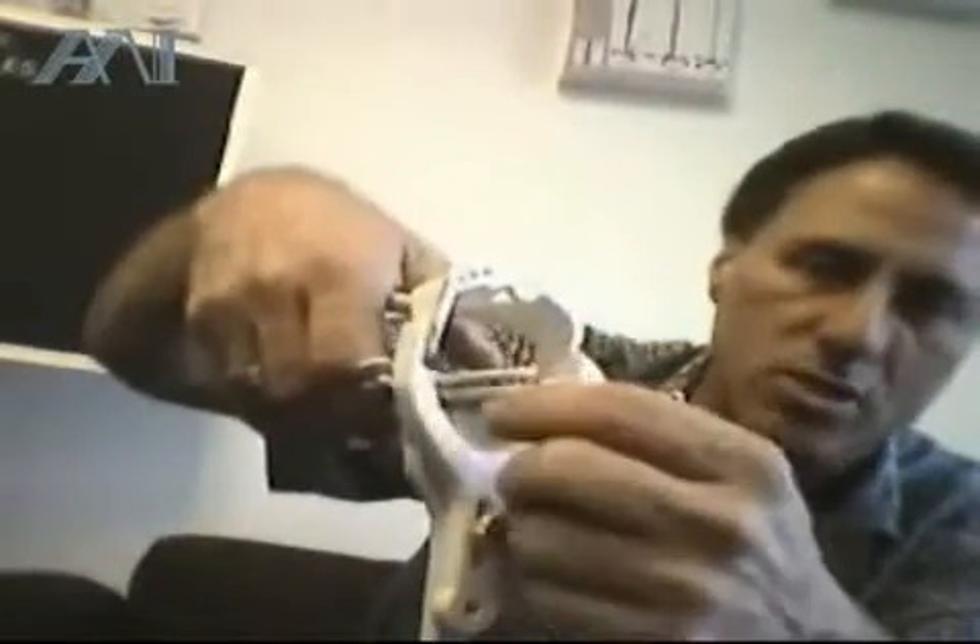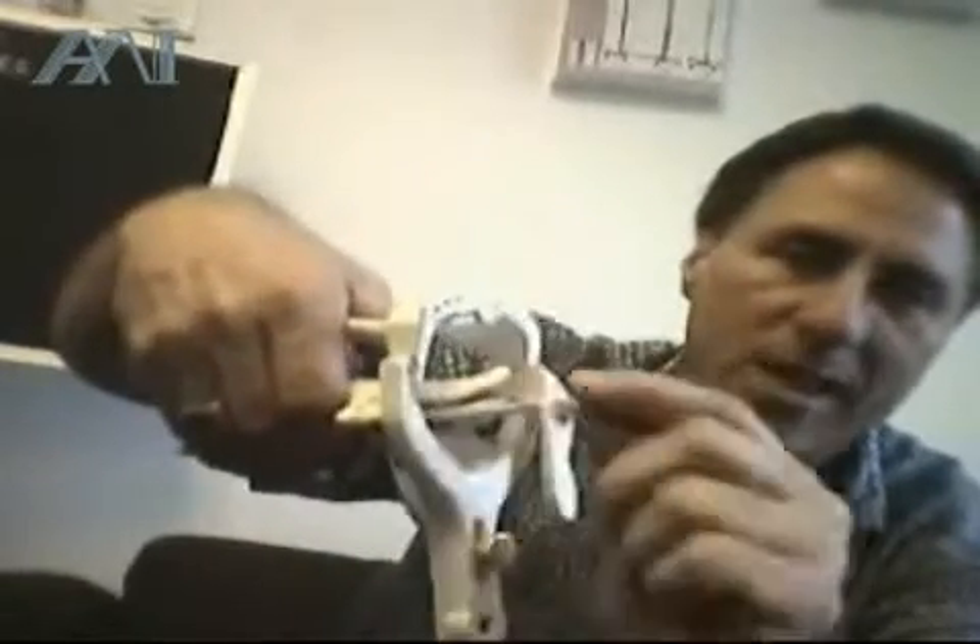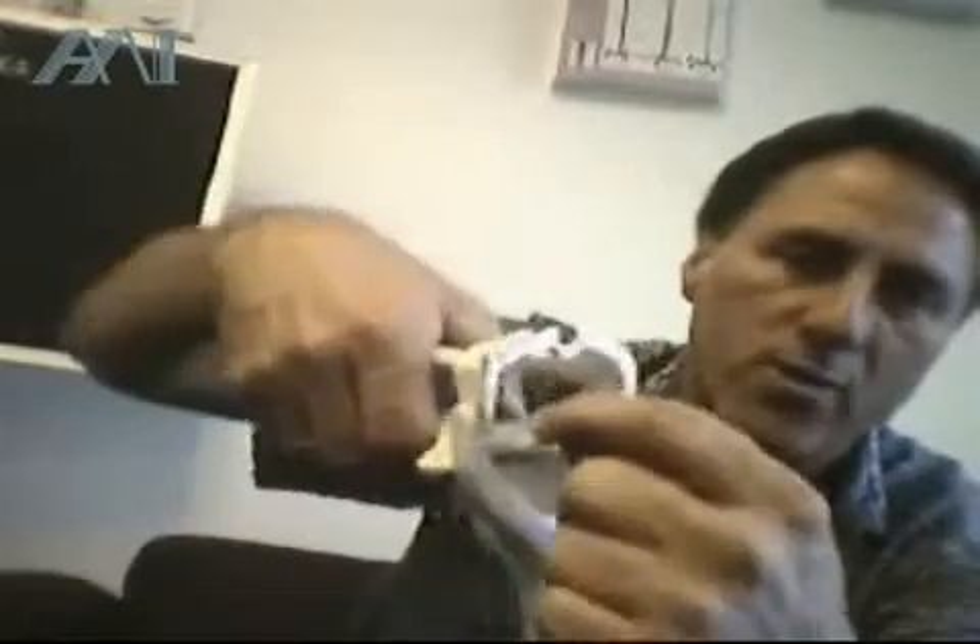Activating the side blades requires a twist motion — just pushing them alone into the wall will not do the trick. You have to snap them into the spring, because the plastic is pliable, so you actually have to hold with your thumb and finger the handle.